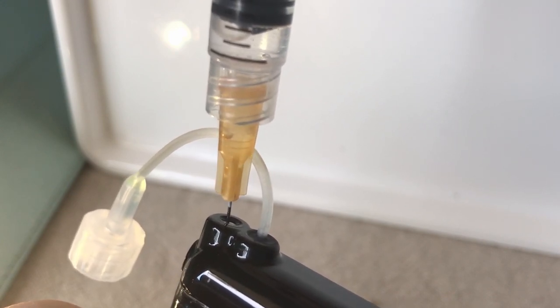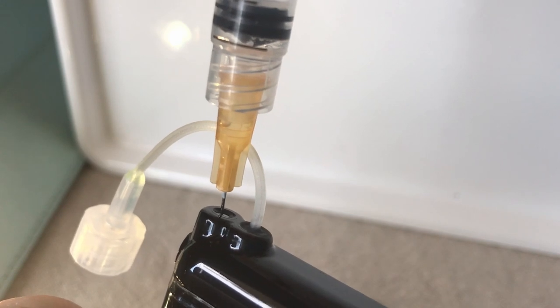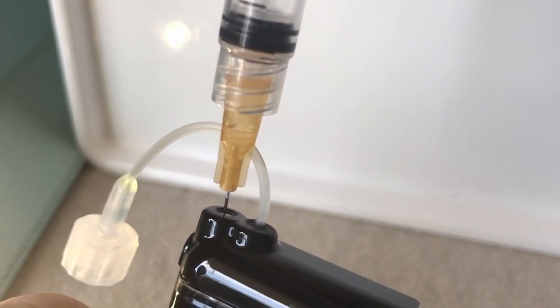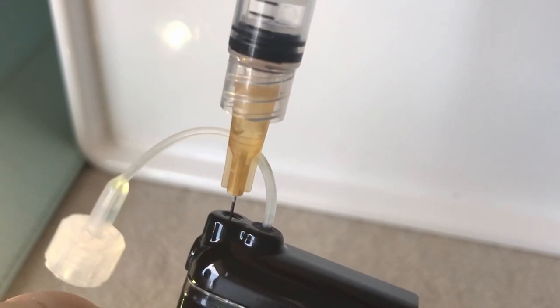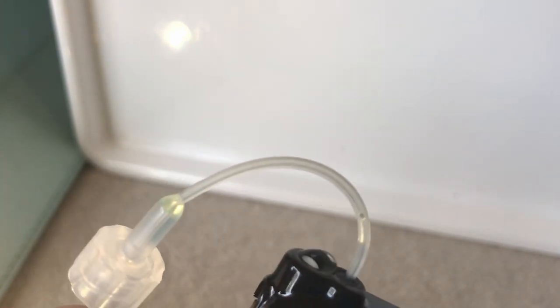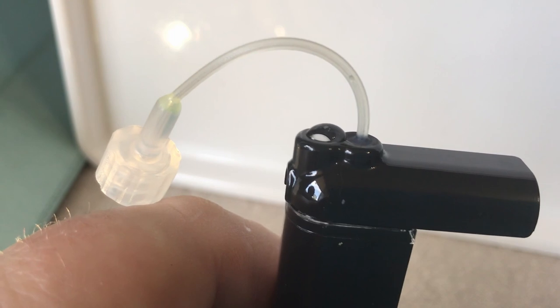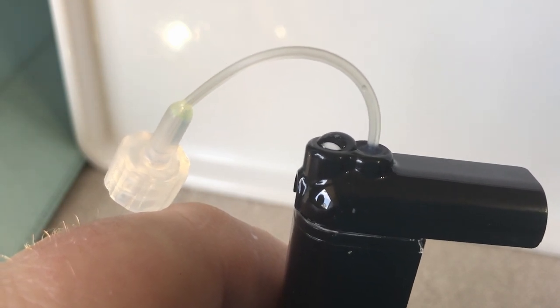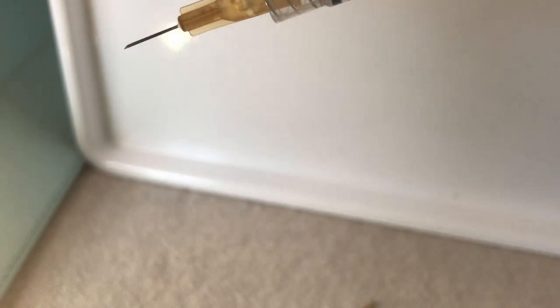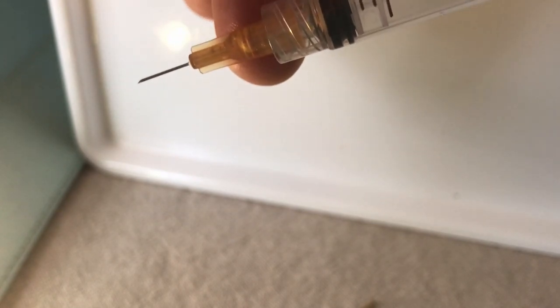Just below the plunger, and this is why I've got the white background. You can usually tell when it goes into - I've got the handshakes. Anyway, you can usually tell when that air goes in. Excuse the handshakes, and pull out. That's it. That's really the only change. It just saves a lot of mucking around. If you did have an excess of air in the syringe, you'll see the air go into that orange connector section just here, just behind my thumb. And that's it. Bye now.